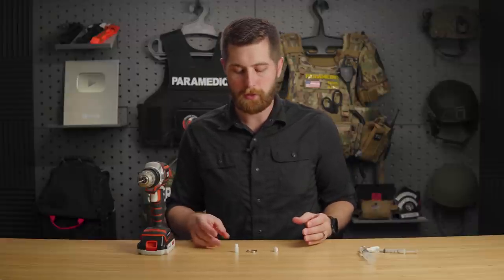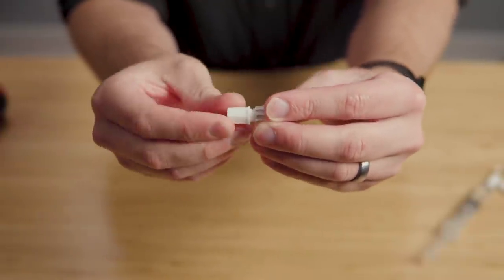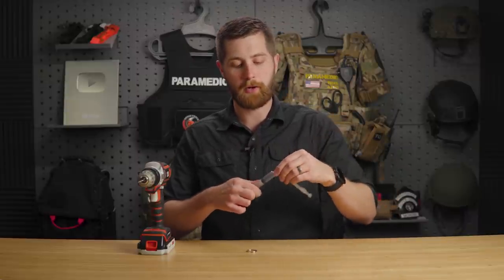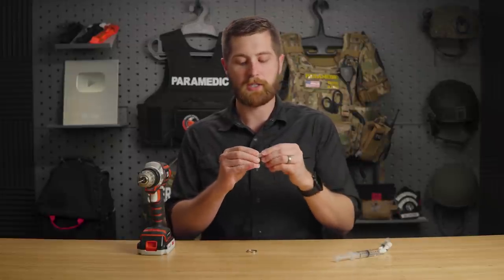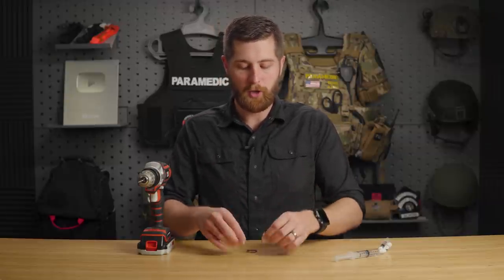The first step is to open your syringe cap and your male luer lock cap and put these together as soon as possible. Infection risk is very real with syringes, and while this device is still far better than shoving an uncapped syringe in your pocket, we still want to keep the tip as clean as possible. As always, you need to follow your own agency's infection prevention policies.